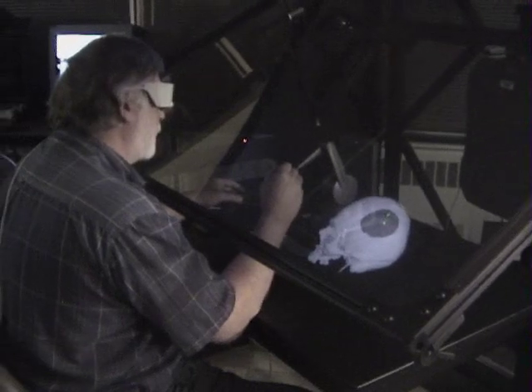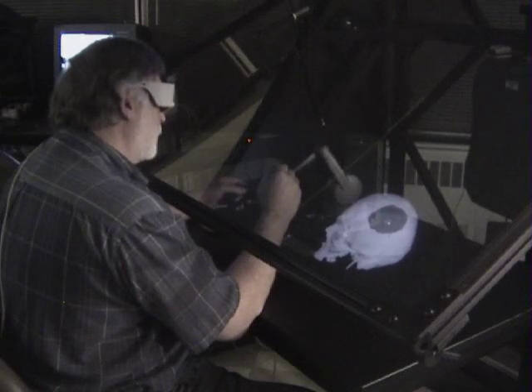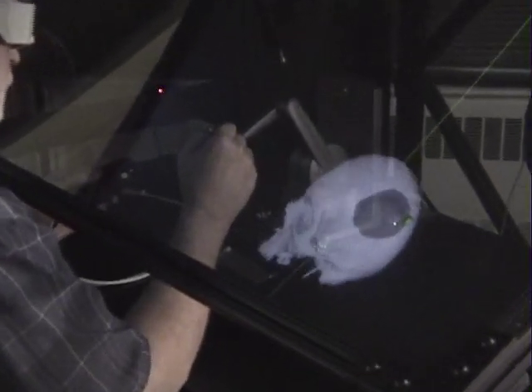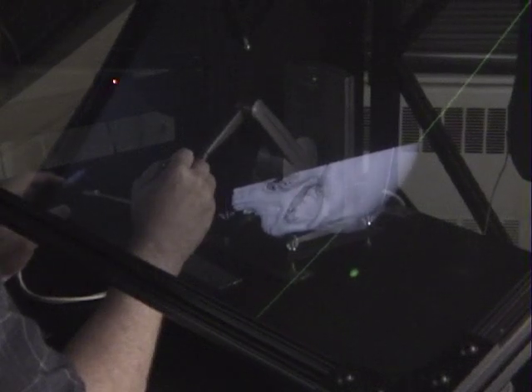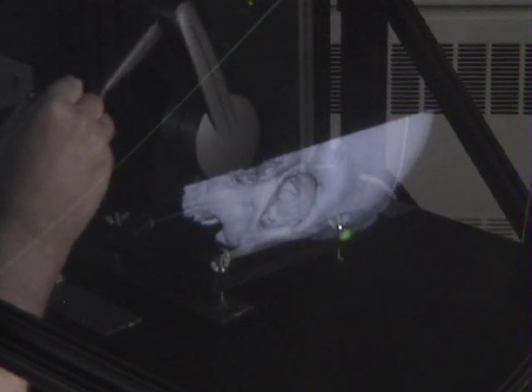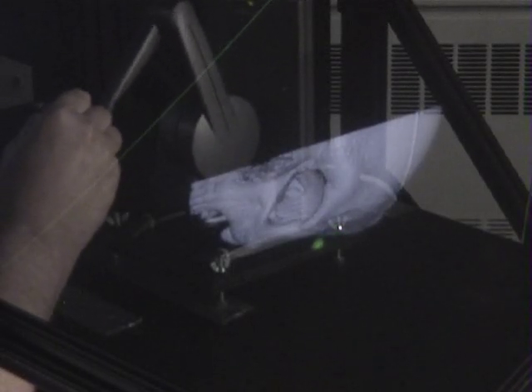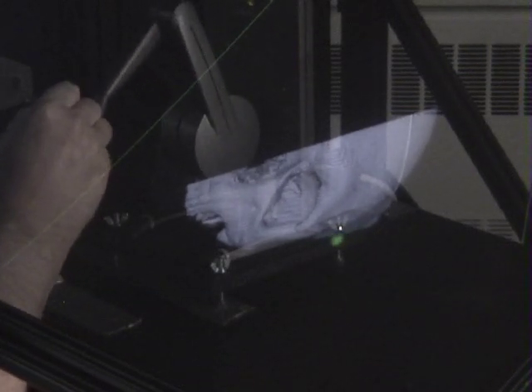Now we have the carving tool, which allows me to reshape the excess volume that I've added with the add clay tool. I can turn the model in an orientation that allows me to see the contour. I can feel the edge of that clay and know that's more than I need. By pressing the button once again, it acts very similar to a Dremel tool with a burr in it, and I have the sensation of grinding away the excess material.